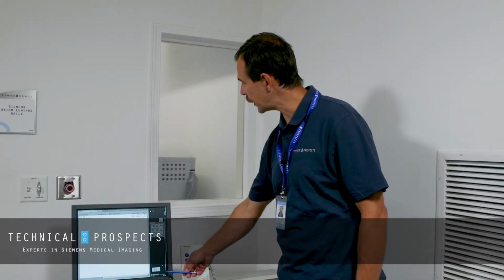After our short reset, the computer wakes up without error. That means your system is ready for the patient treatment.